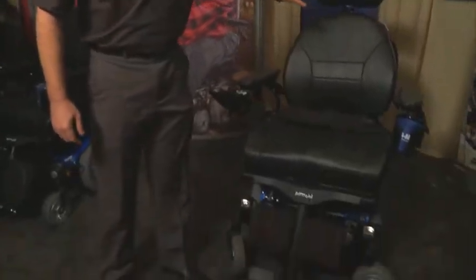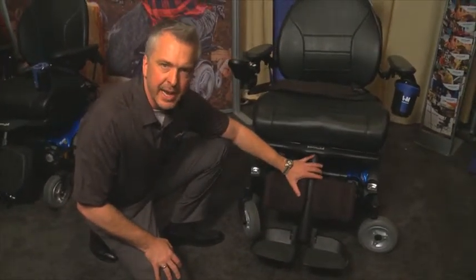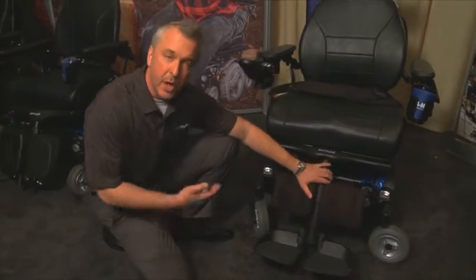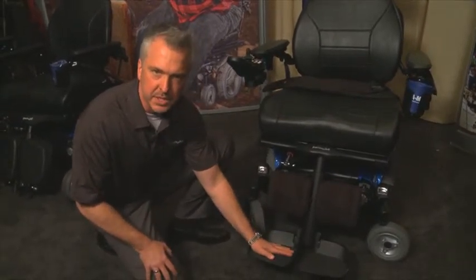Moving up into the seating system on the chair — this bariatric seating system is very similar to the 3G seating system we launched a couple of years ago, but everything has been reinforced. On the leg assembly we changed the entire leg design so that now it's a cast steel piece instead of welded parts, which makes it a lot stronger. We also changed the slide plate so when the legs elevate and articulate out it moves more smoothly and can handle the weight of someone's legs.